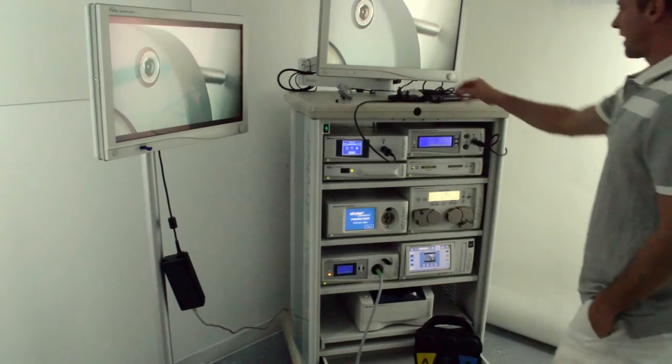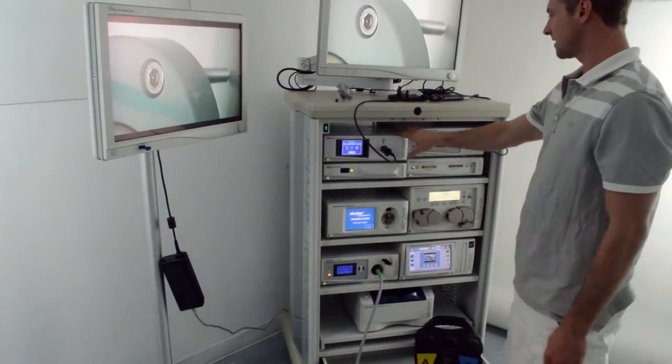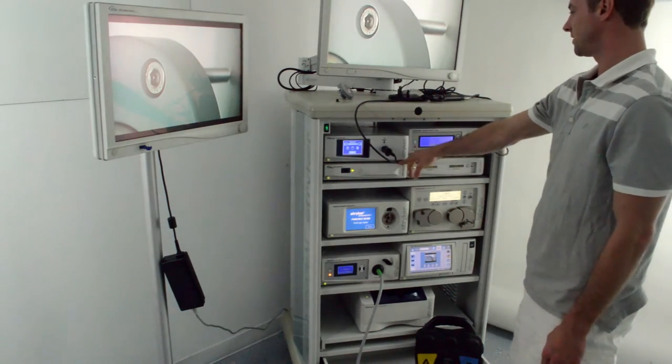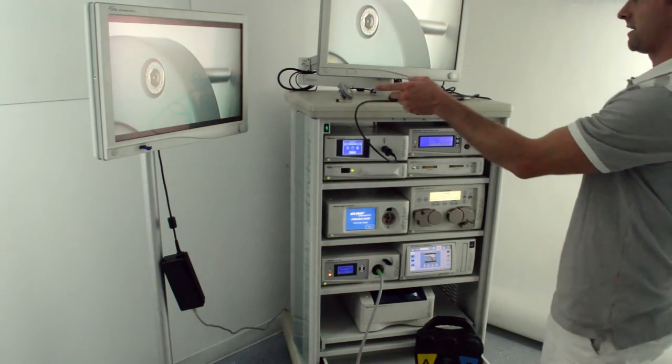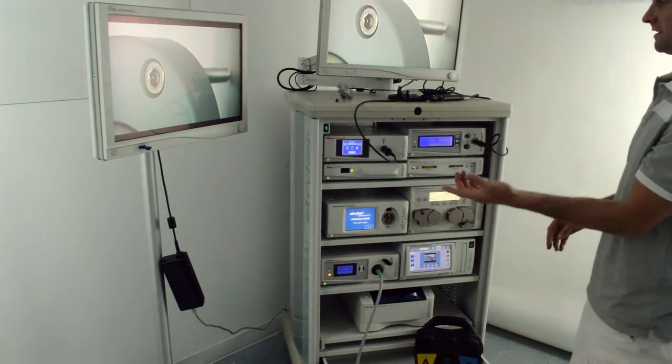The 1288, obviously, is the camera, and this would be the coupler. This is connected to the WISE HD transmitter. It displays a secondary monitor with an image without the use of a DVI cable.